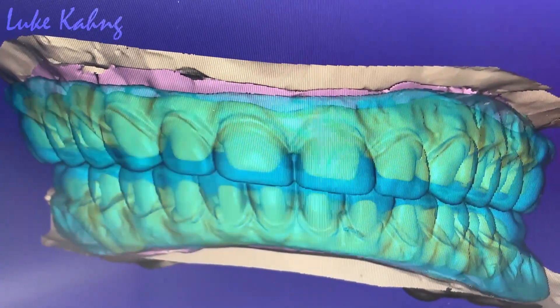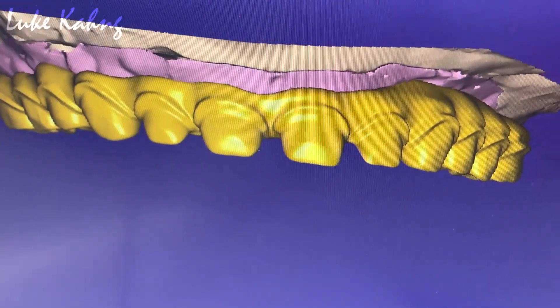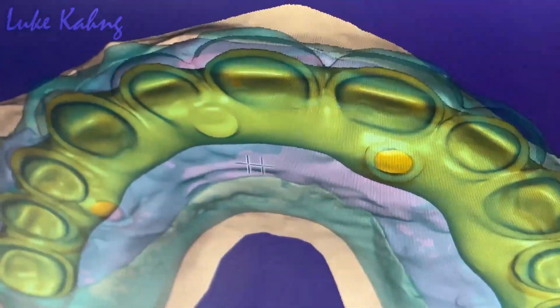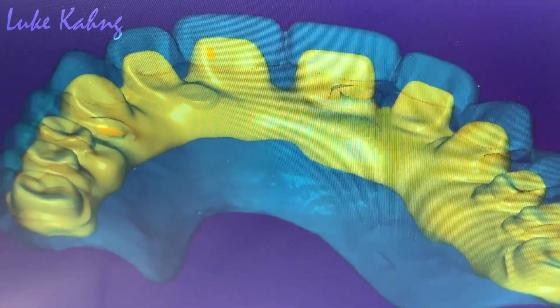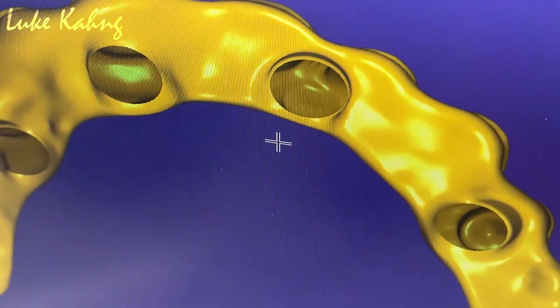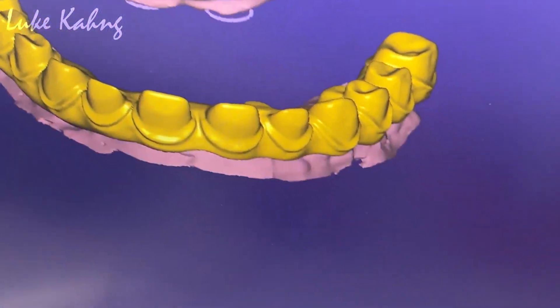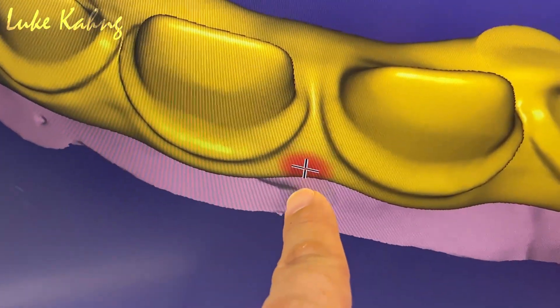This is the design — make it specific, three millimeters inside the edge. For the occlusion lingual, we'll make a good indentation line between the teeth. Let's see the underneath too. That one is best we can do. I think you can go a little bit more facial — bring it in. Should be okay. That's enough right there.